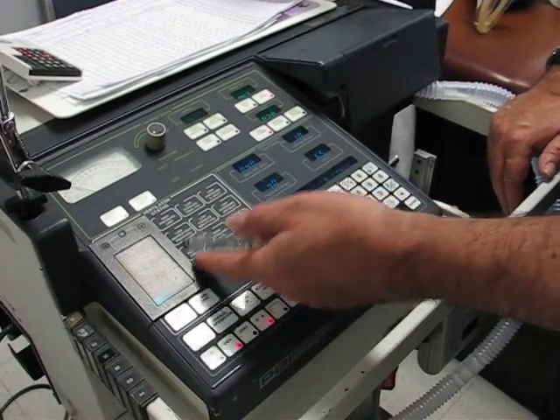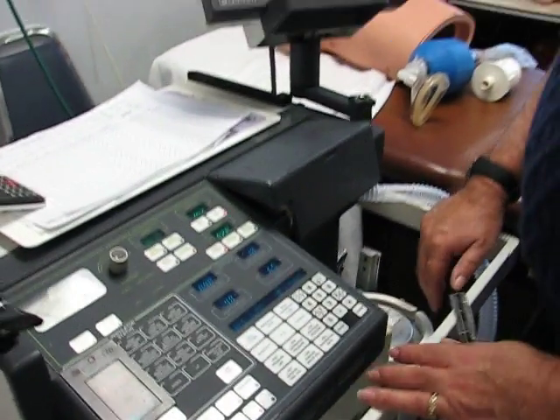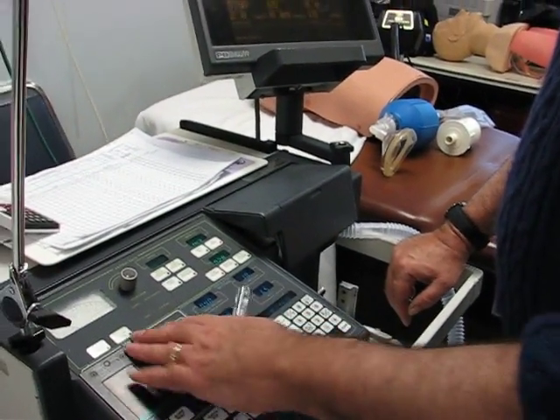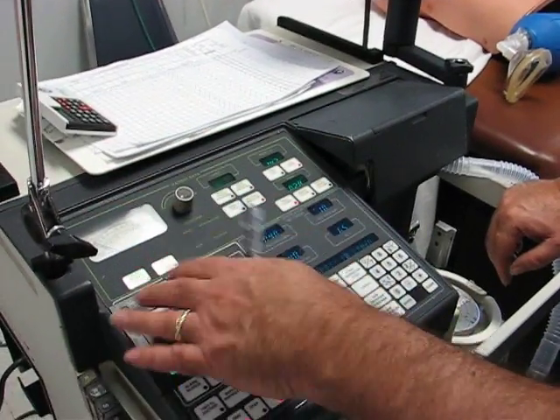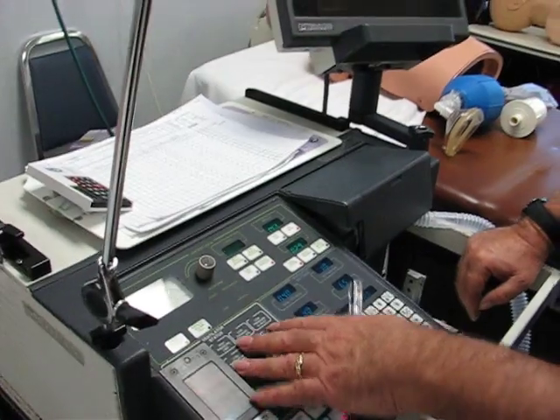See, that alarm was a silent alarm. It wasn't ringing. If it was ringing, you would know it right away. Right. So, okay, everything is done. Everything's going well. There's no alarms. The 2-second pause is off.